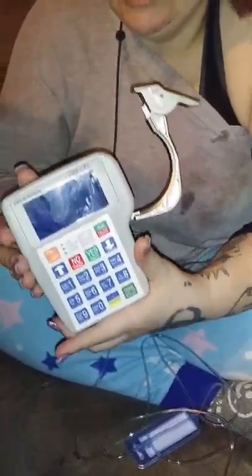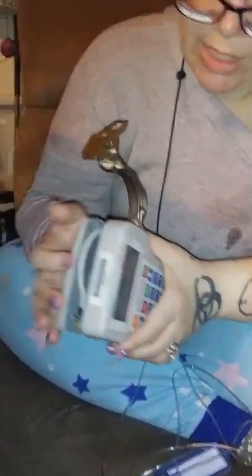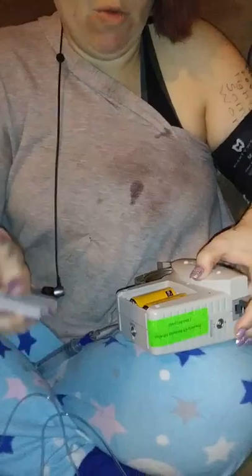So I'm going to leave this attached so I don't have to scrub this hub again. And then my pump — it's a very nice, easy-to-deal-with pump. It has a color code system: there's a yellow dot here and a blue dot here that matches what's on the line. And then it has a program that's already in there from my pharmacist, so I don't have to do much of anything.